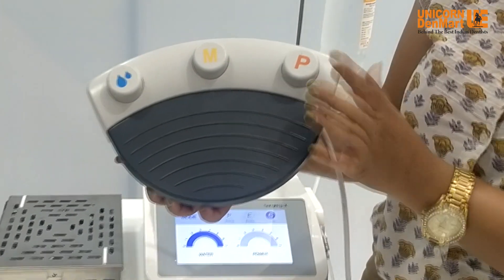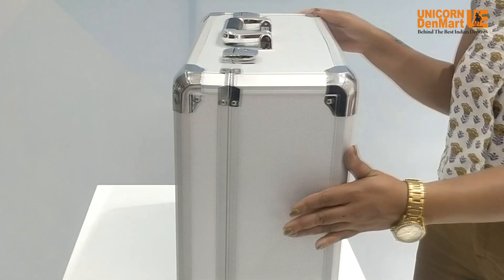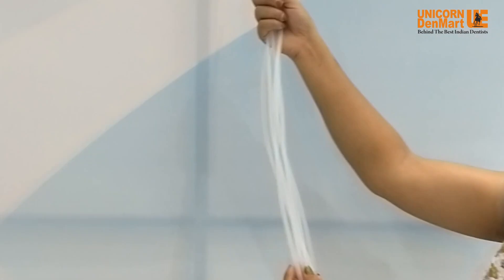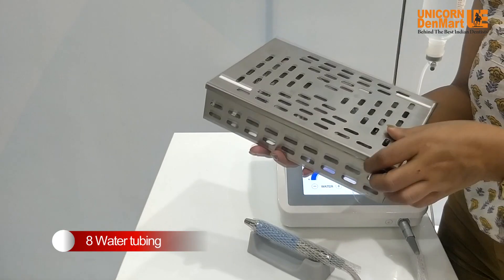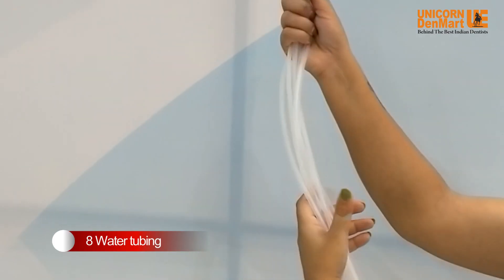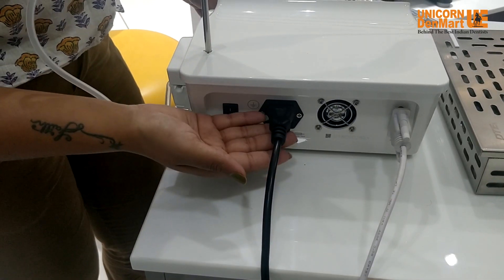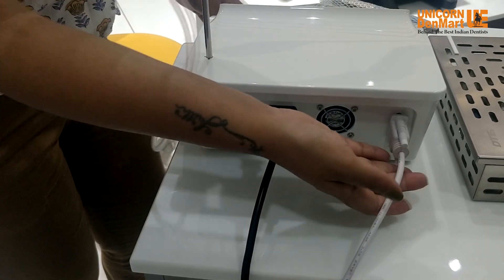The third button is for adjustment of power from 10 watts to 70 watts. The unit is available with a complementary aluminium case adding to its portability. Surgery X offers a total of eight water tubings — two are attached with the LED handpieces and six come separately as backup. The machine has two ports: one for the power cord and another for the foot control.